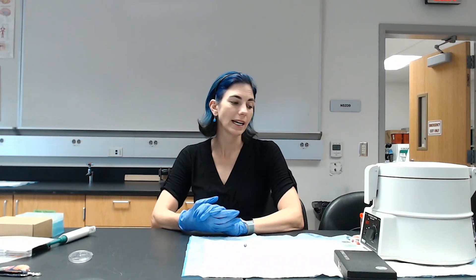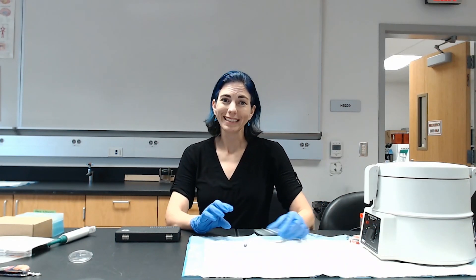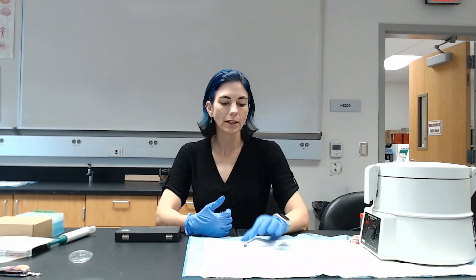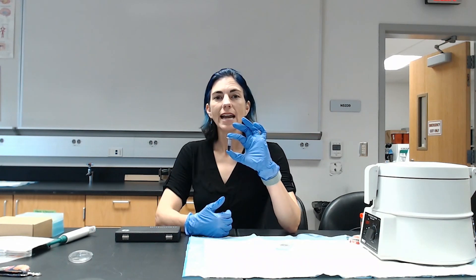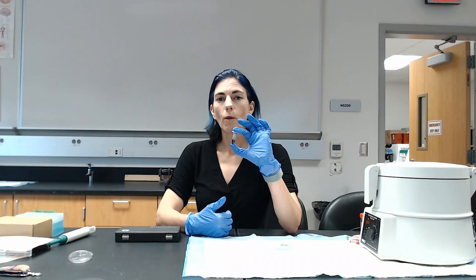The total white blood cell counts are going to be done using our hemocytometers. Instead of diluting blood in typical saline solution, we dilute it into Turk solution. Turk solution has acetic acid that lyses all of the cells and then stains nuclei. All red blood cells lyse, and while white blood cells lyse too, the nuclei from each white blood cell stay intact. You just count the number of nuclei you see, and that tells you how many white blood cells you have.